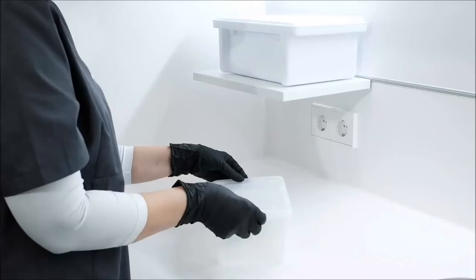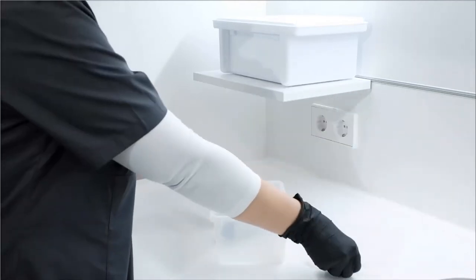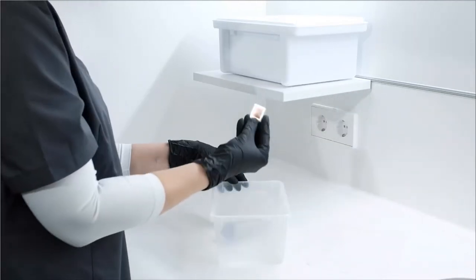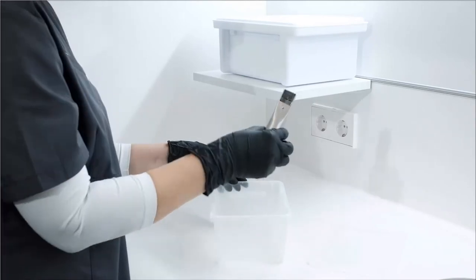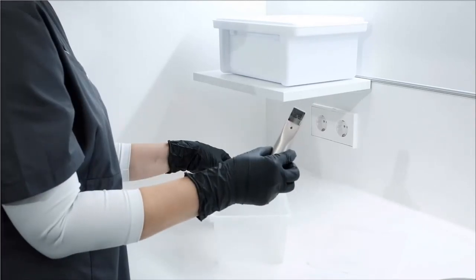The last step is to re-process the sleeve. Discard the disposable window according to local regulations. Re-sterilize the sleeve as shown earlier in this video and store it in a location without risk of contamination.